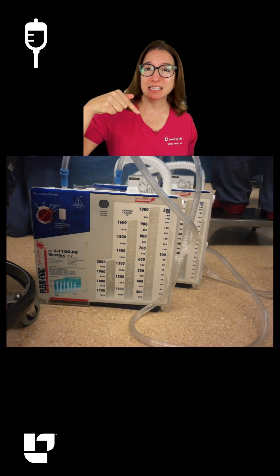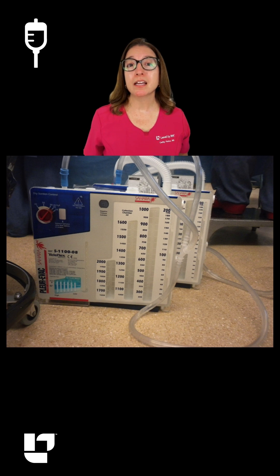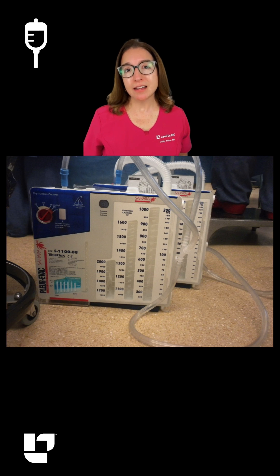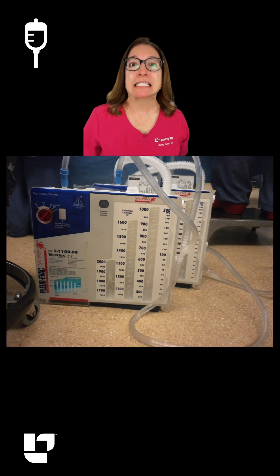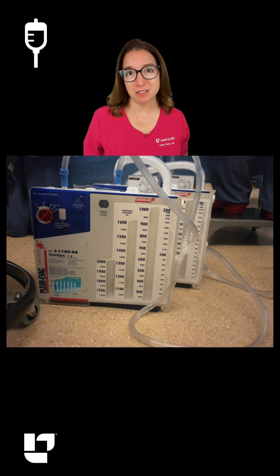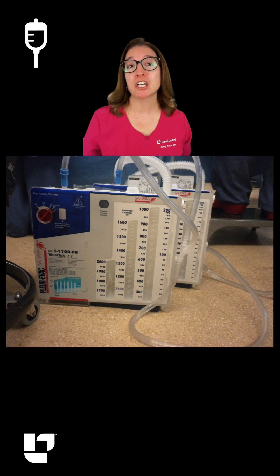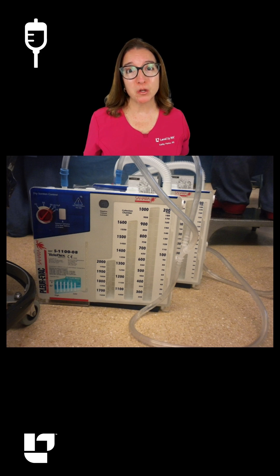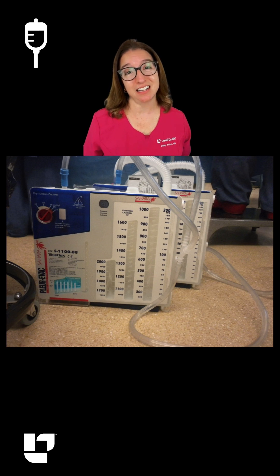This is a chest tube system. If you're going to be working in a hospital on a med-surge floor, ICU, or step-down unit, you will definitely be seeing and caring for chest tubes. In addition, understanding the three chambers of a chest tube system is super important in nursing school and something you will definitely get tested on.